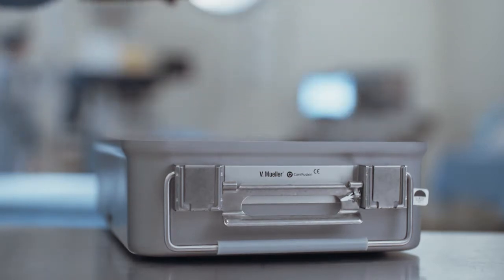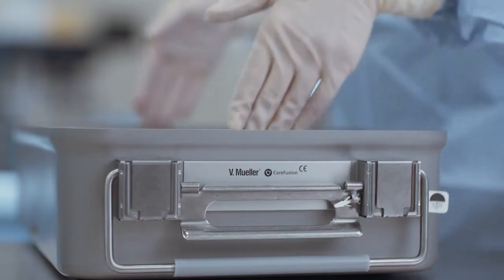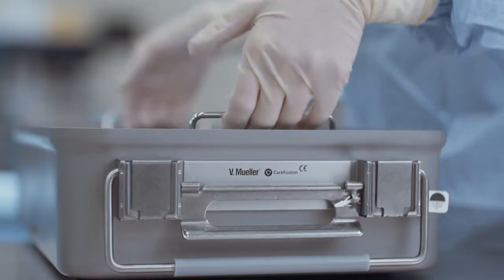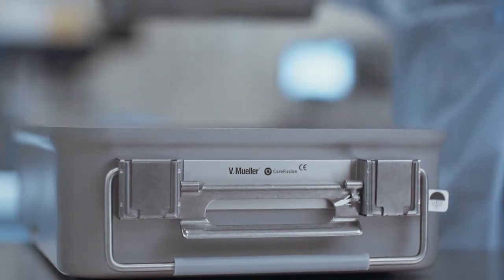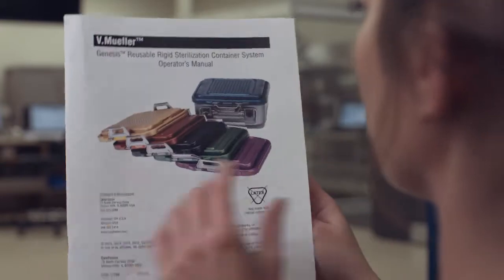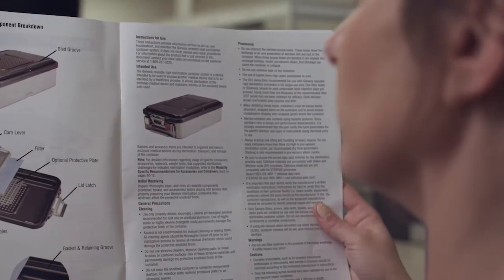This video will provide information on how to set up, use and maintain the Genesis Sterilization Container System. Consult the Genesis instructions for use prior to using the system.